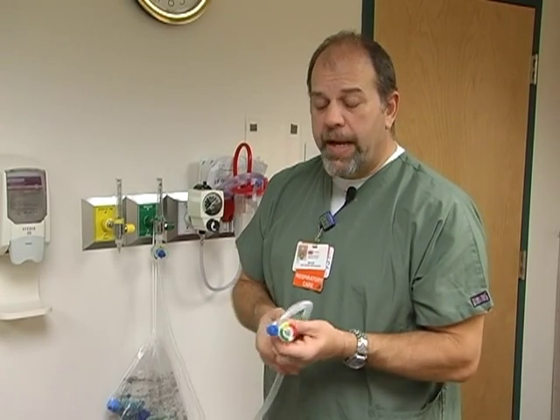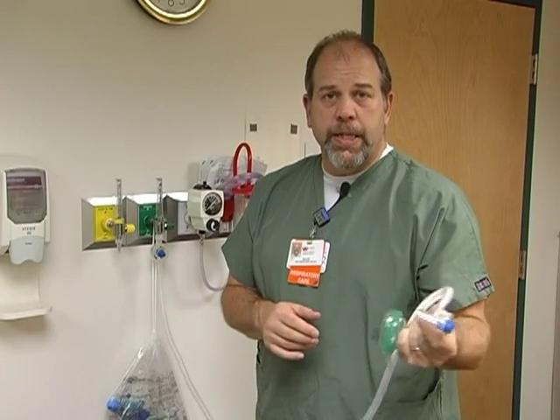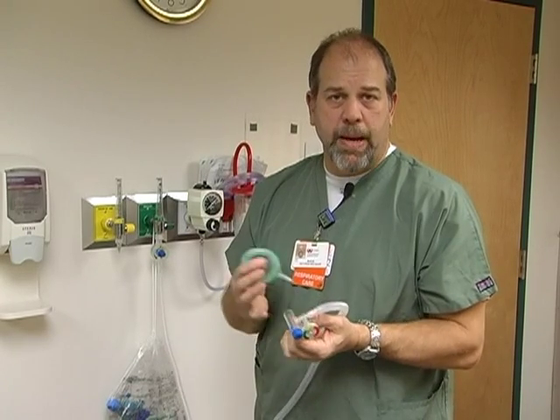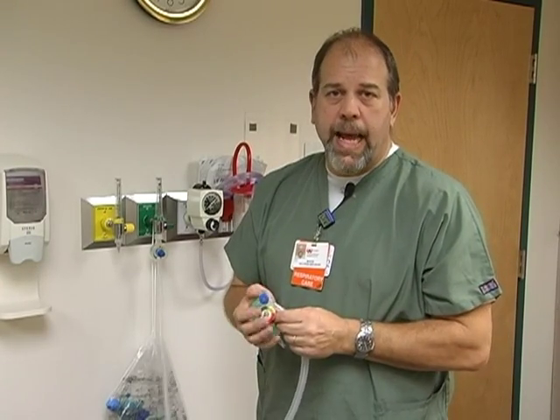Thank you for your time. These devices will be at each bedside and on each transport. By the time this video is out, the transports will be adapted with analyzers and pulse oxes, and we'll be ready for NRP standards coming into effect January 1st. If you have any questions at all, please don't hesitate to call me — my number is 4610. Leave a message and I will get back to you. Thank you very much.